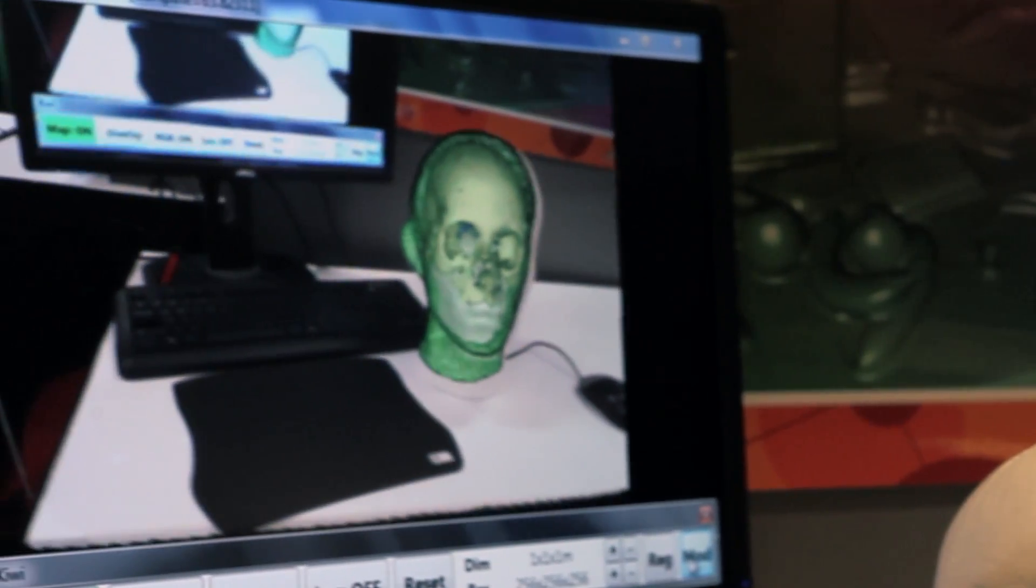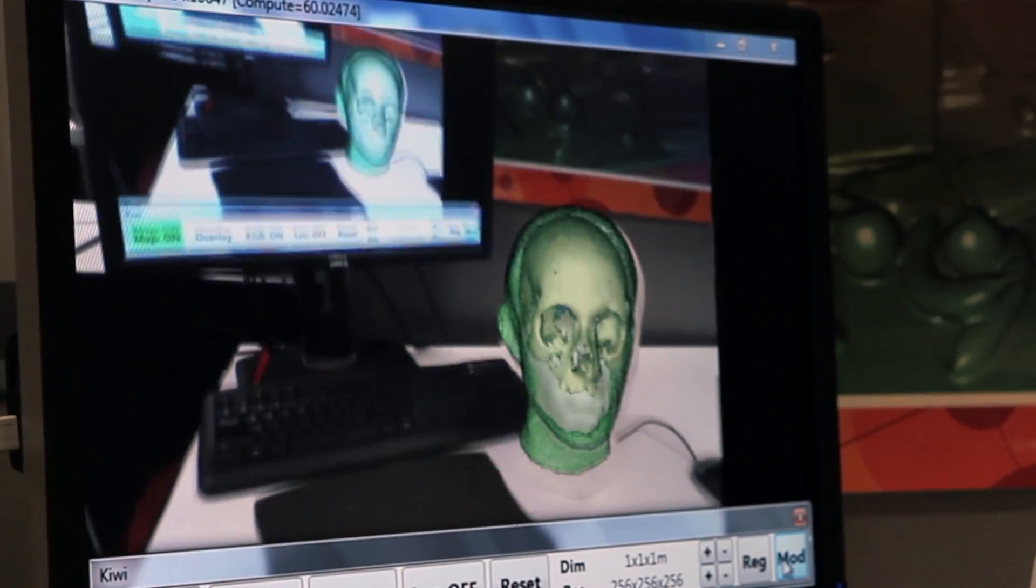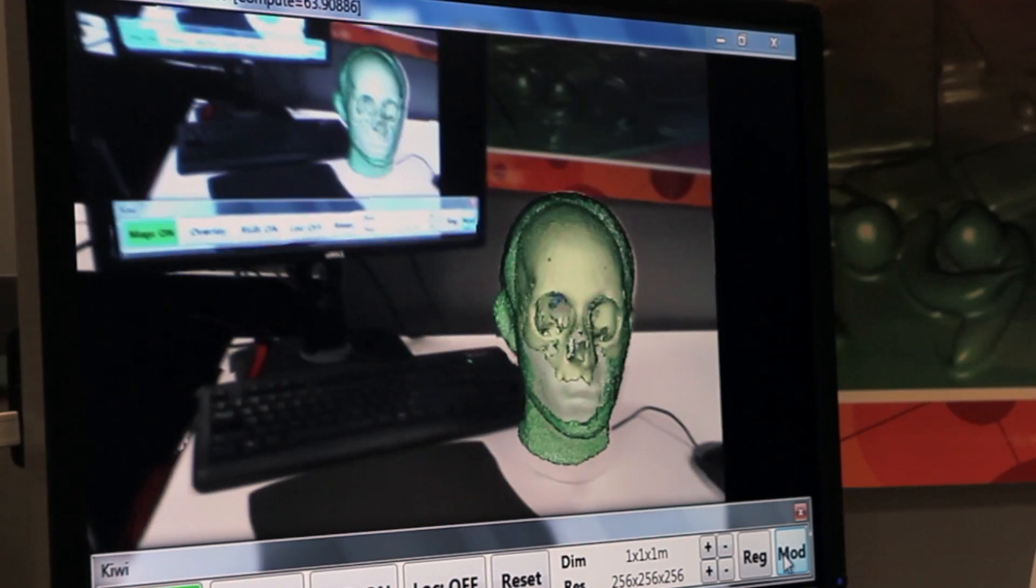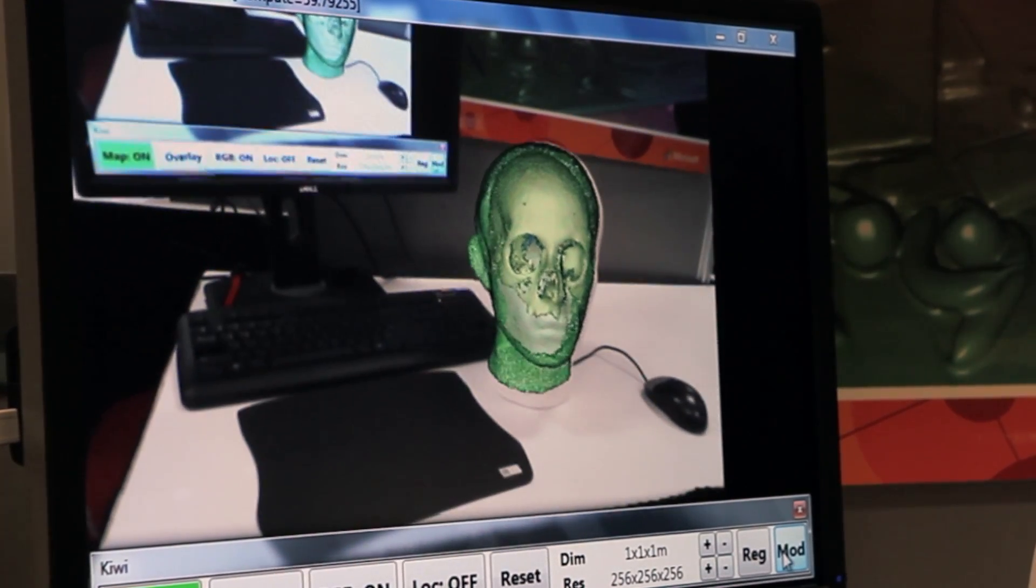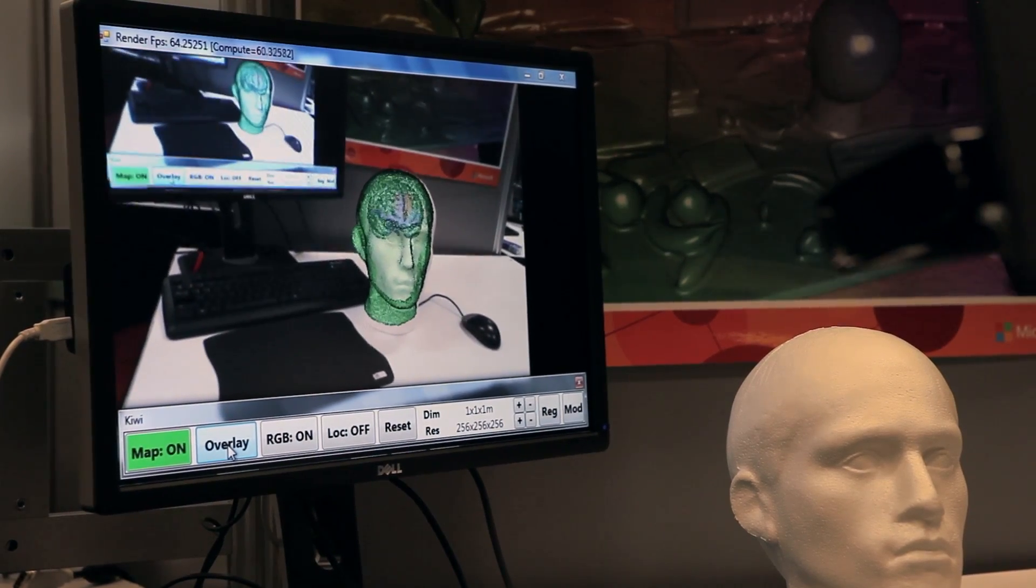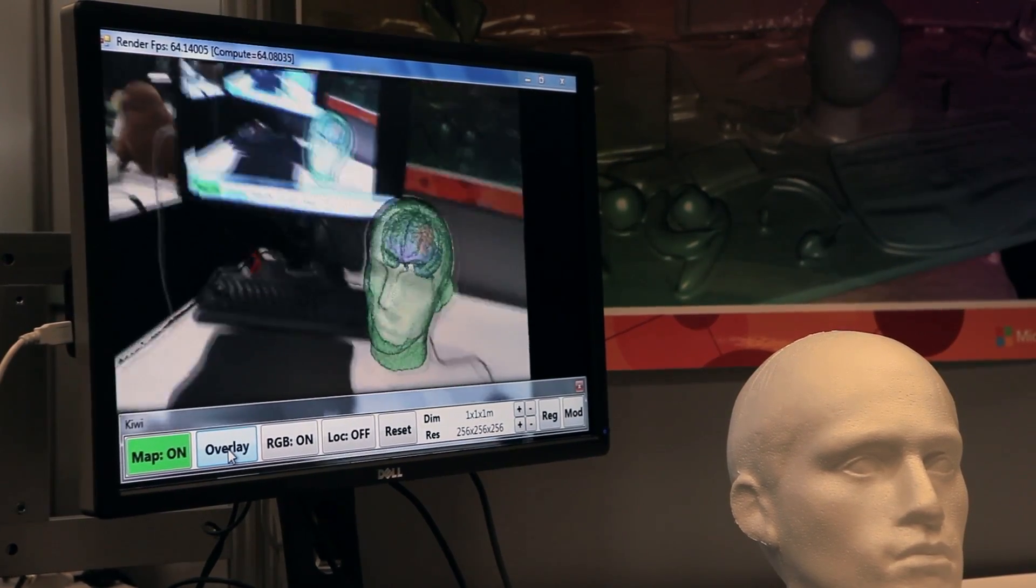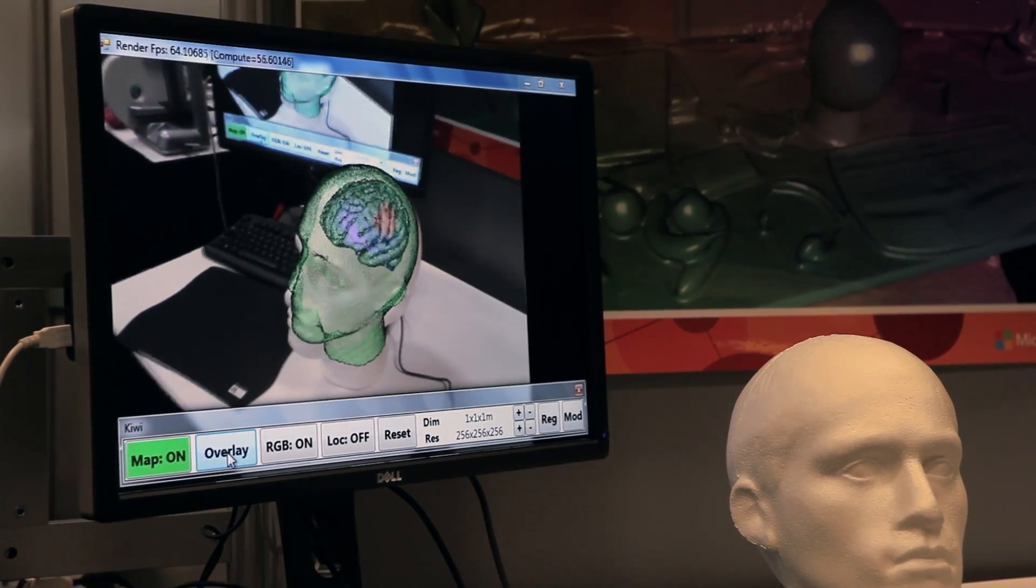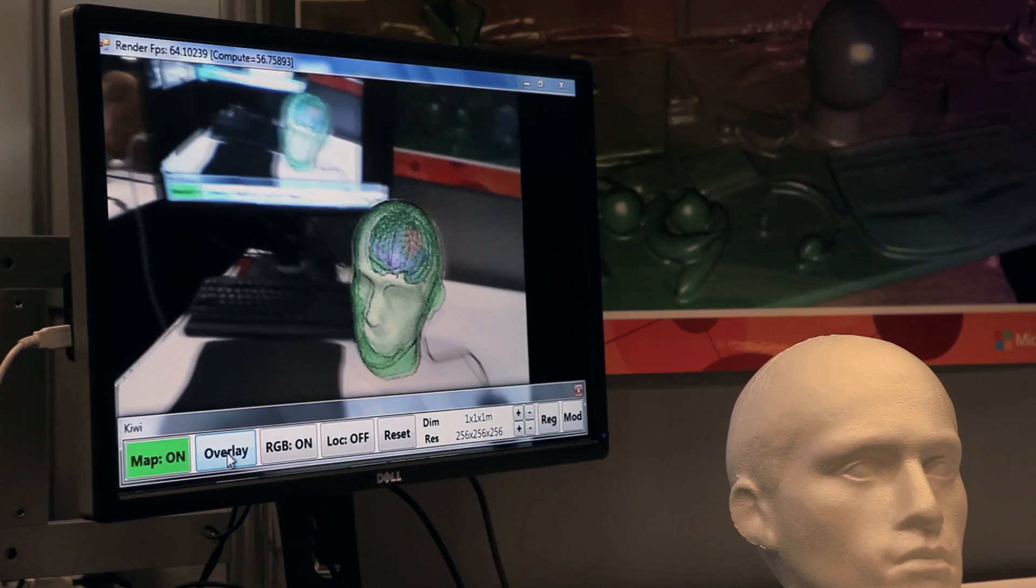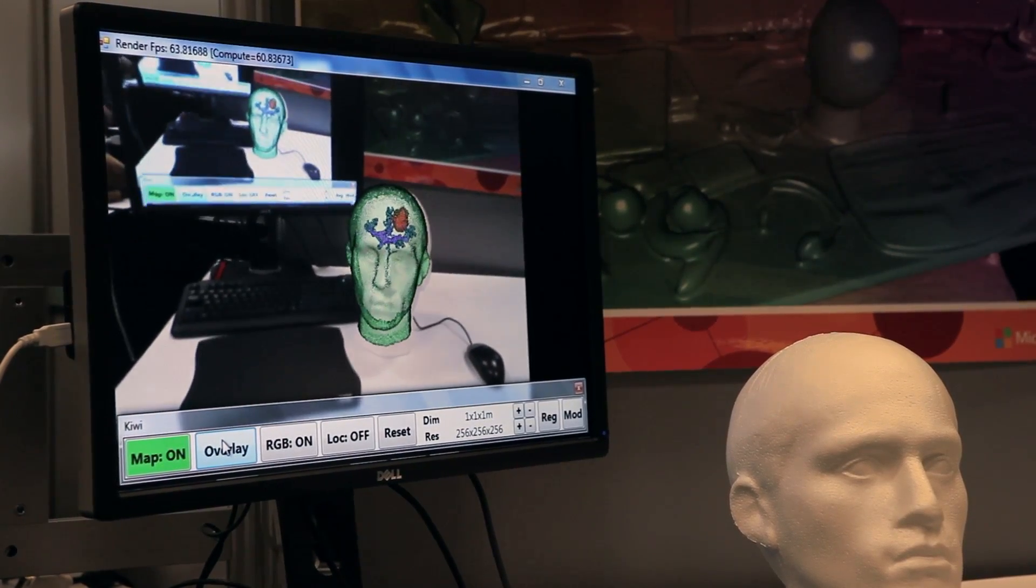And now since I have all the information from the medical scan, I can for instance remove the skin and now start to look inside the skull without actually opening it. So I could for instance see the bony structures here. But actually I am interested in removing the tumor region. So I can also remove this bony structure. So now I can see the brain of the patient. And you already see this red area. This is the tumor that I want to remove.